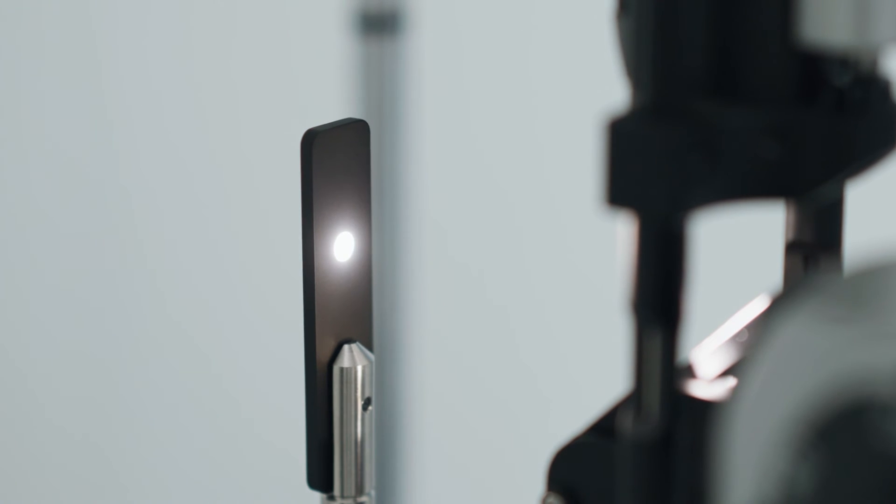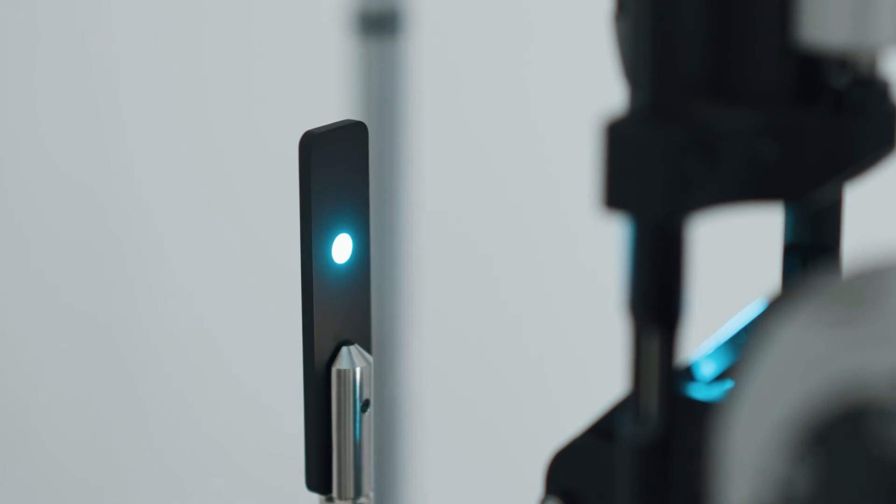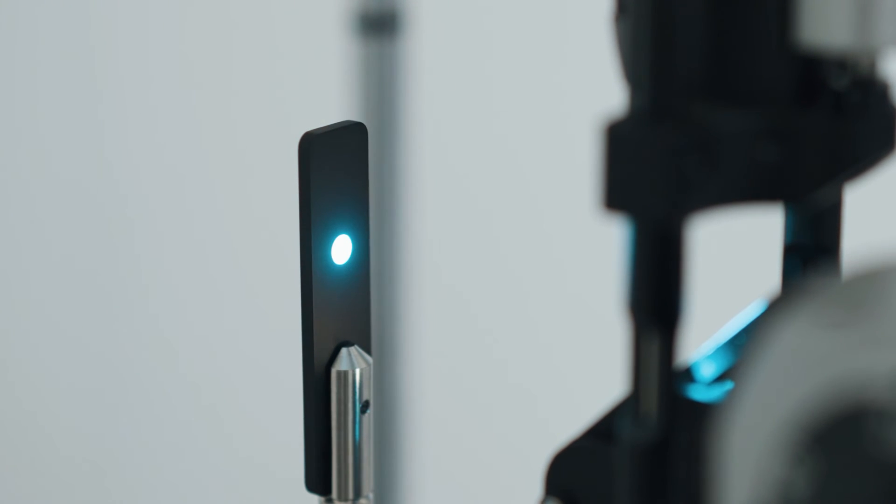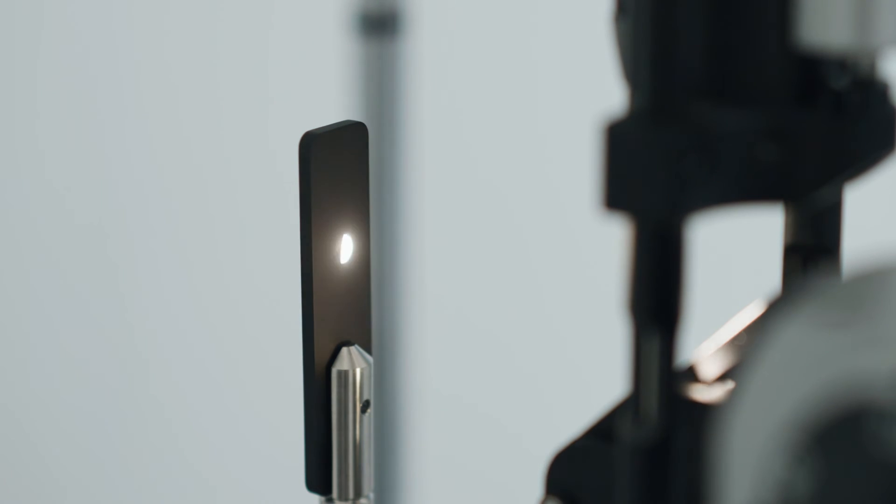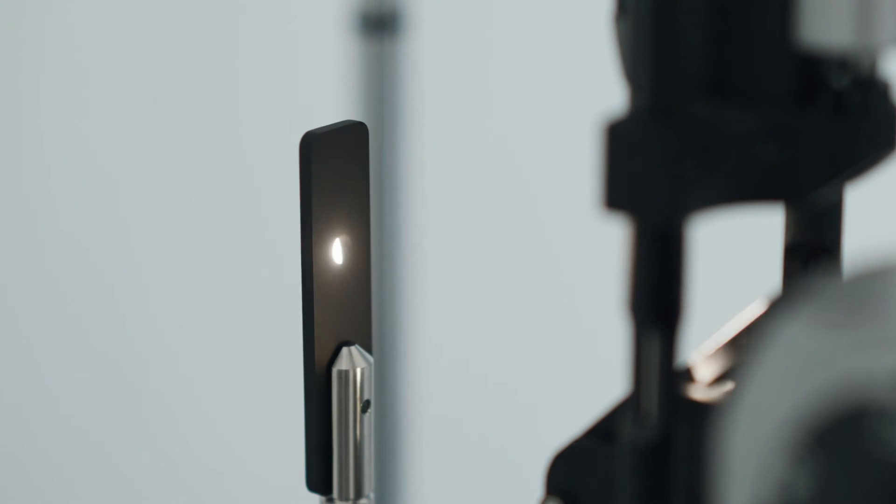The blue filter and the green filter are also standard on all models. 700GL and 30GL have the blue cut filter enabling safe observation in any scenario.